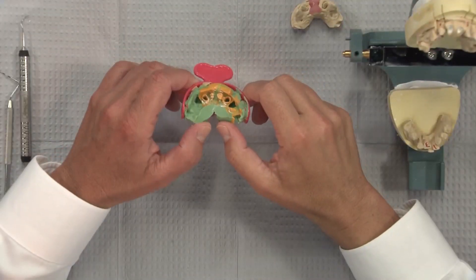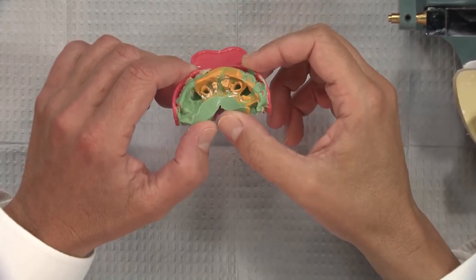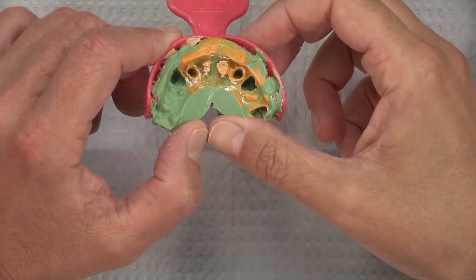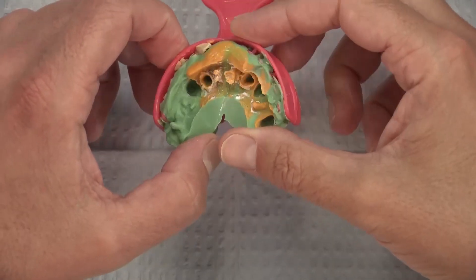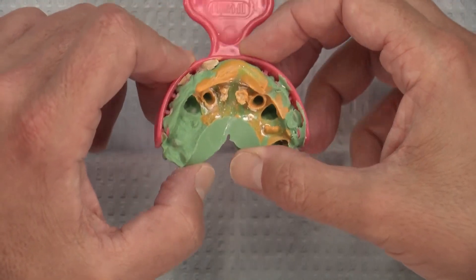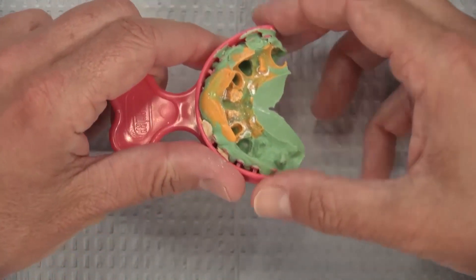This week's Case of the Week is for a four-unit Zirconia Bridge, a Bruxer Bridge from seven through ten, missing teeth number eight and nine. As a lab, we're not a big fan of double arch impression trays being used for bridges — we just see higher remake rates with that. But if you are going to use one, this T-Lock Tray from Premier is a good one to use.